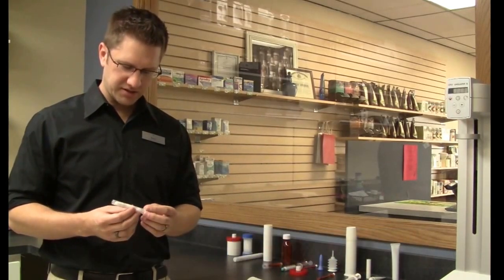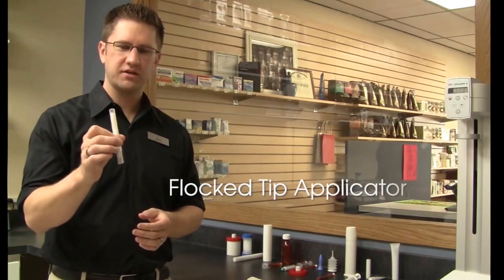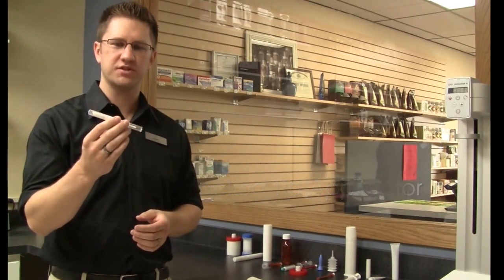Hi, I'm Jason Binger with SunPride Hometown Pharmacy. Today we're going to look at and discuss a common topical dosing device called the Flocked Tip Applicator, also known sometimes as a dial-a-dose or a twisted dose.